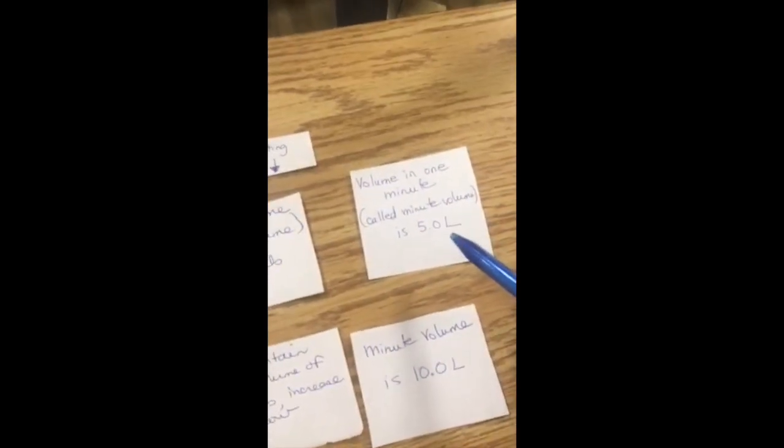Okay, so I'll just show you what we've done here. So this is patient A. So our goal is 10 breaths per minute. We have a 6-second time cycle, 2 seconds inspiration, 4 seconds expiration. Here, the lung volume is giving us 500 mils, and we achieve that by adjusting that flow control, and that will give us a minute volume of 5 liters.